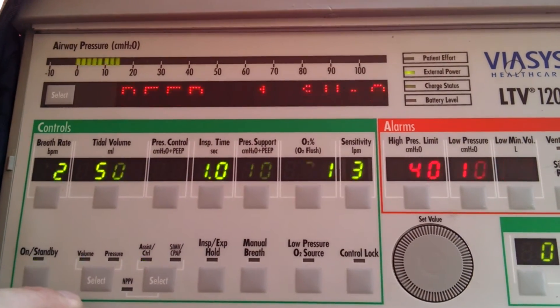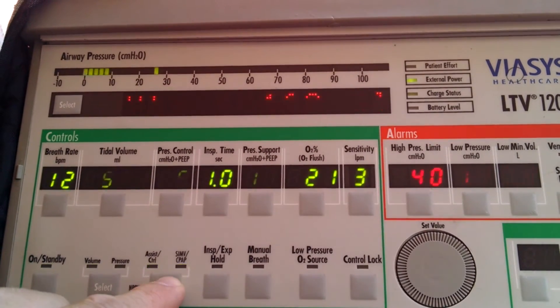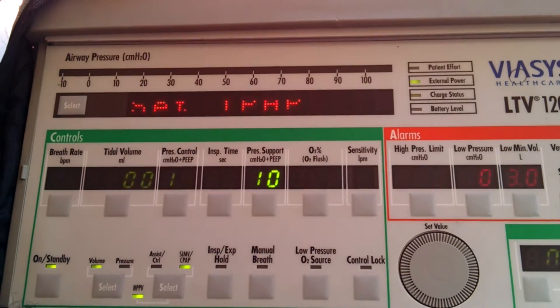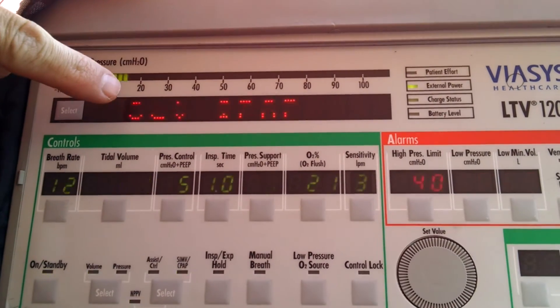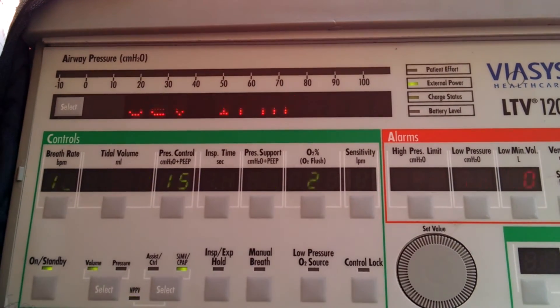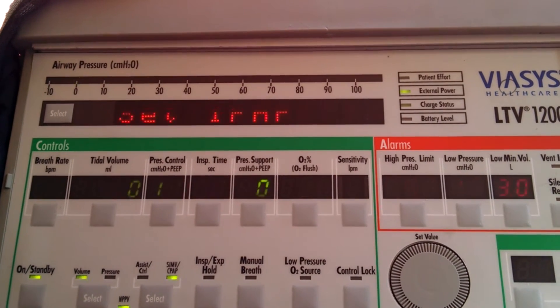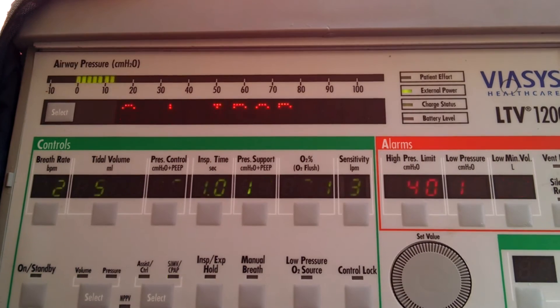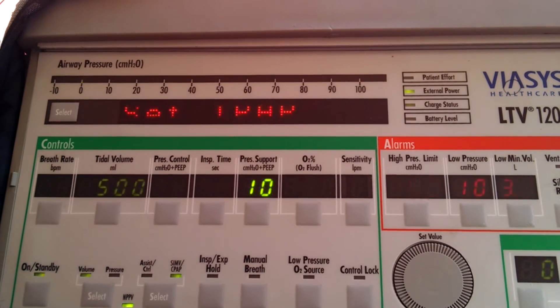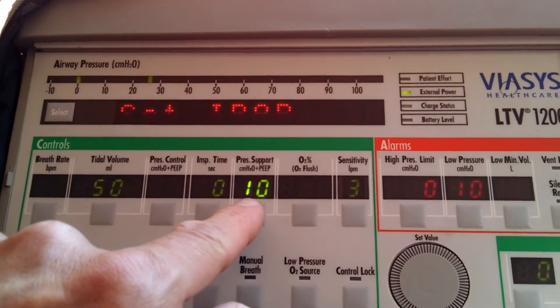Don't worry about setting volume or pressure initially, we're not going to mess with that - this will take care of itself later. We're going to press the select button until NPPV starts flashing, then hit it one more time. Now you're going to see it say 'Set IPAP' and the pressure support is going to light up with 10 here initially. Our machine is additive, so if we want 10 over 5, our pressure support is actually going to be set down to 5.